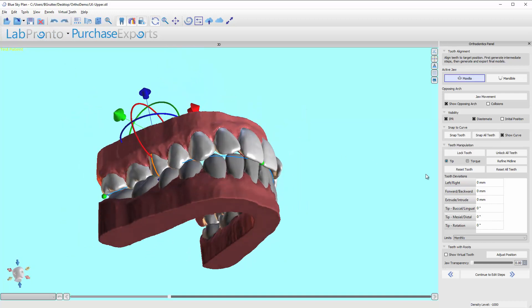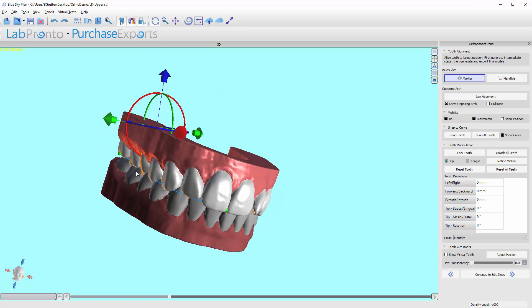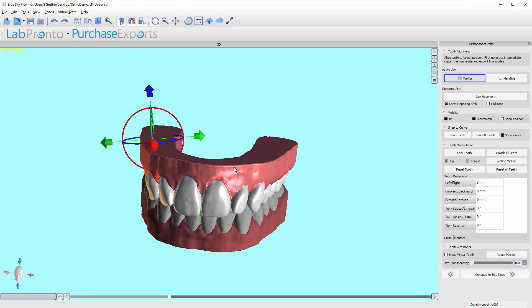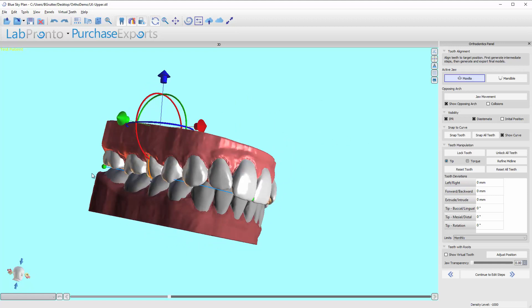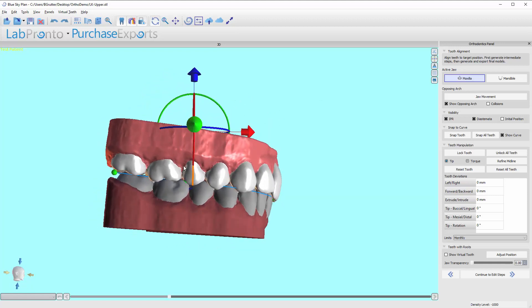That is the refined midline. I jumped ahead a little bit by coming down here, but I thought it was important to discuss it because we could see that orange line. I want you to know that's available to you — it really helps to visualize. We used to have to adjust just the pivot without really being able to see where it came through the tooth; the line makes it much more obvious.